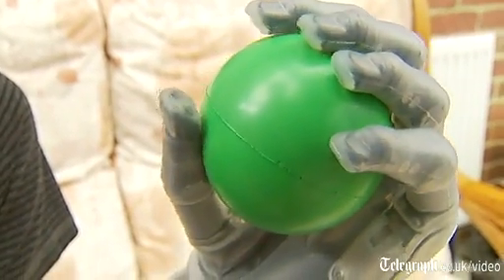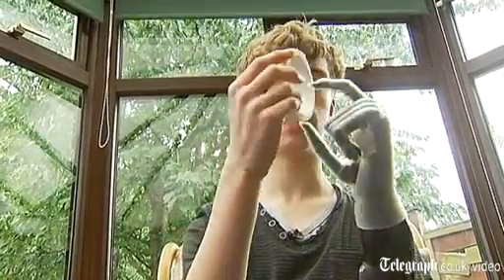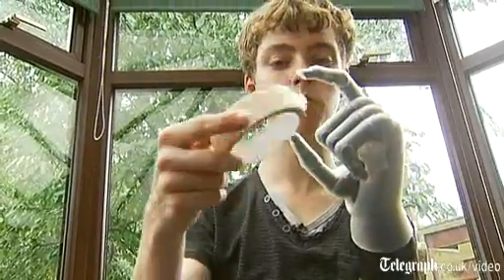You can move it across for grabbing handles, for example. If I wanted to pick up this right here — before this hand, I would automatically pick it up and hold it against my chest with my left hand. But now I'm almost training my brain to think I can really pick this up.